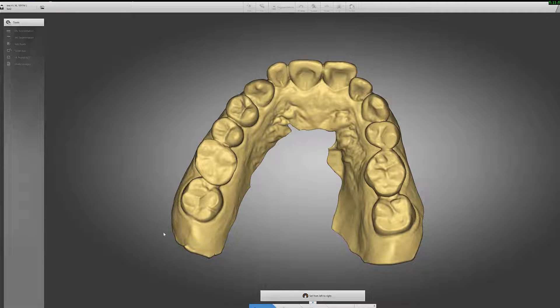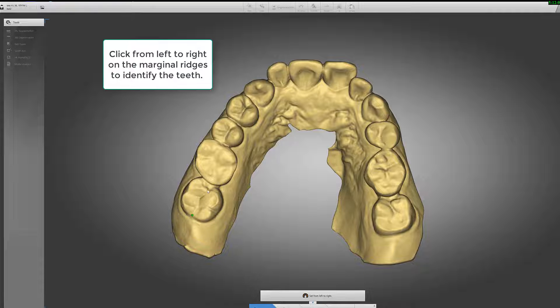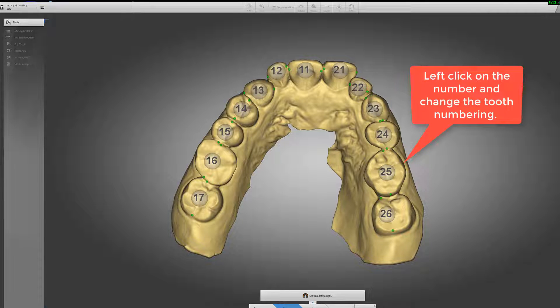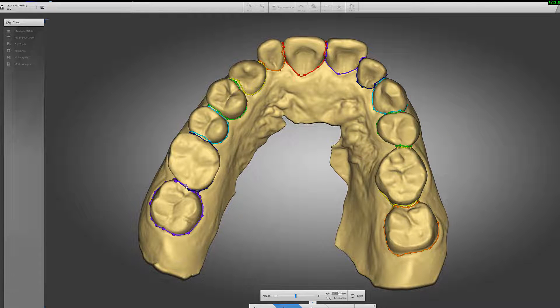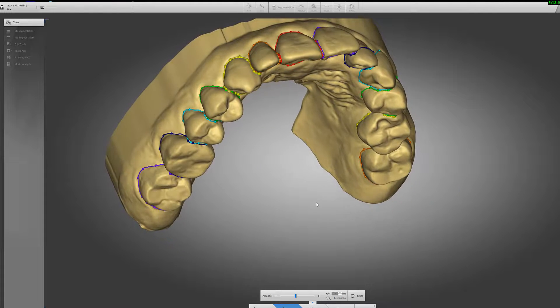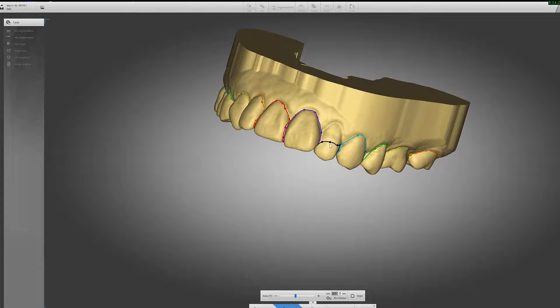The software doesn't tell you what to do, but you have to click on the mesial and distal end of every single tooth. Then go to 'Contours of the Teeth' and spend time correcting what you don't like. By left-clicking you can add little tabs. Make sure you have the contour you want — there's a problem here, so let's contour this tooth a bit better.